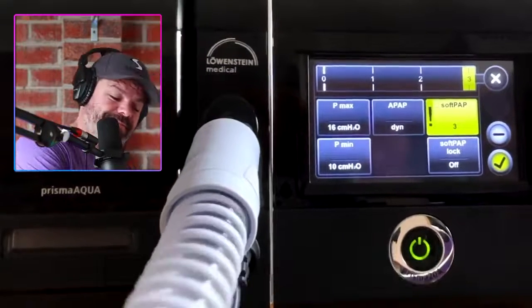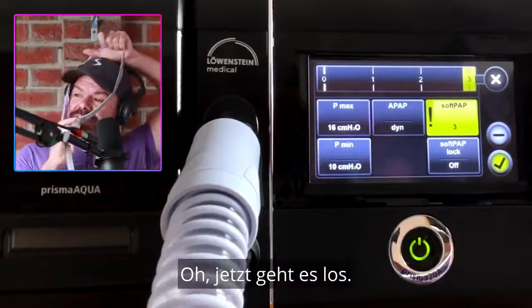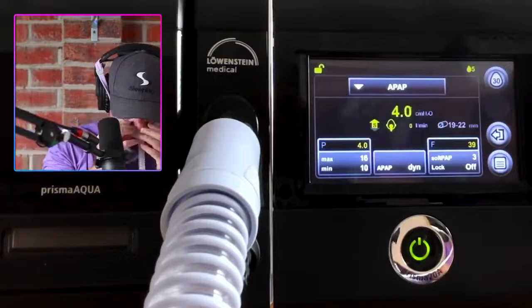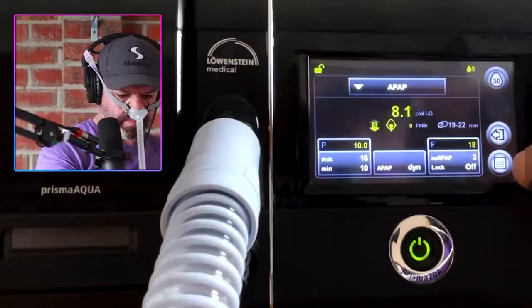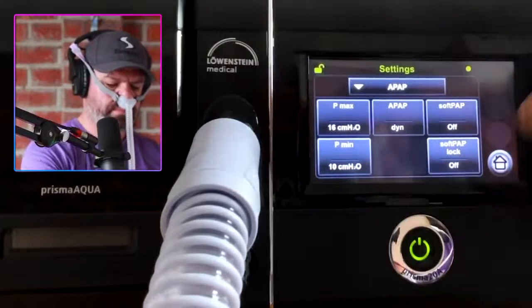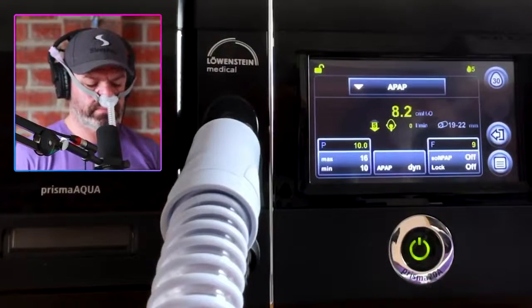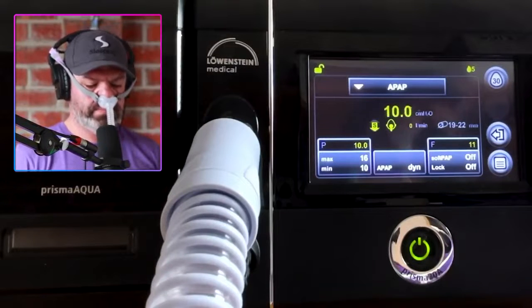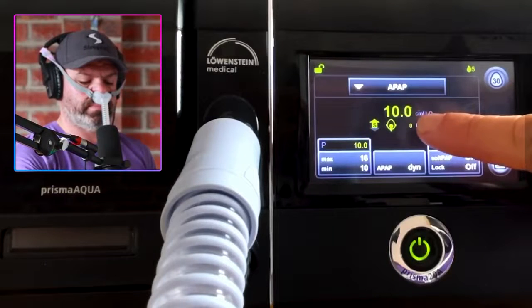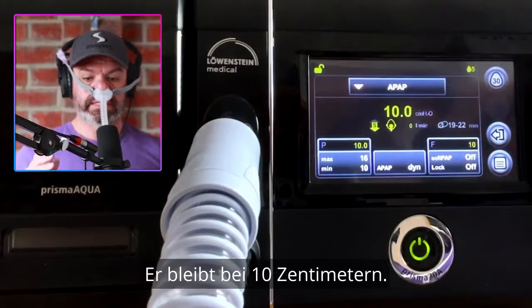Let me just grab my mask. So let's start with SoftPap off. Watch the pressure — staying on 10 centimeters.